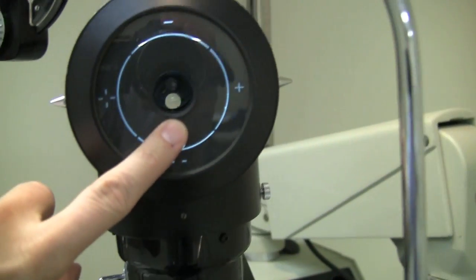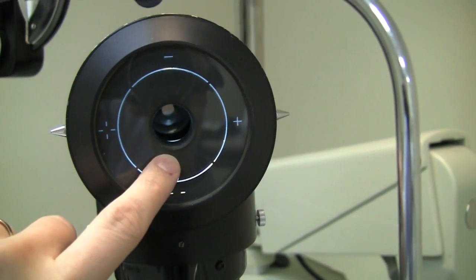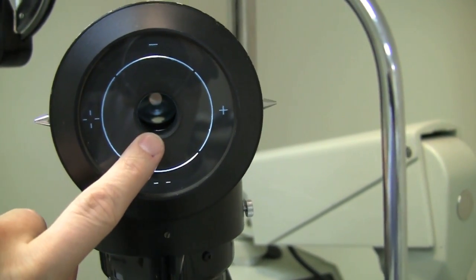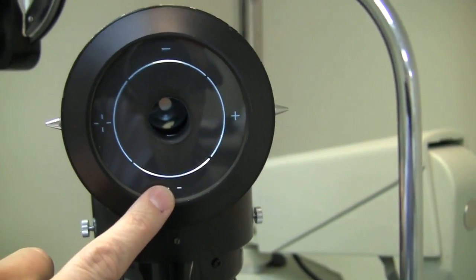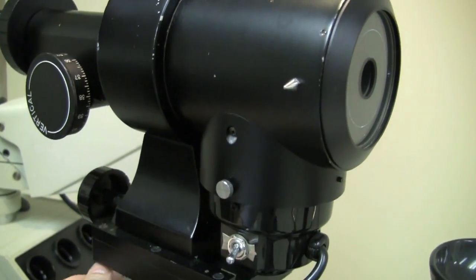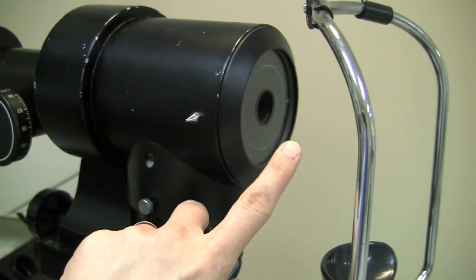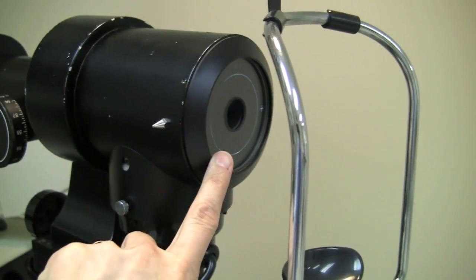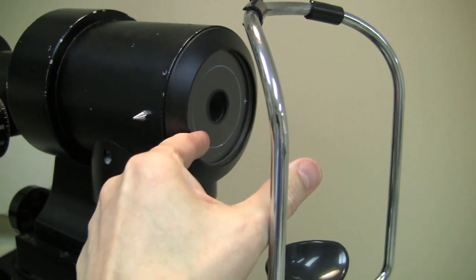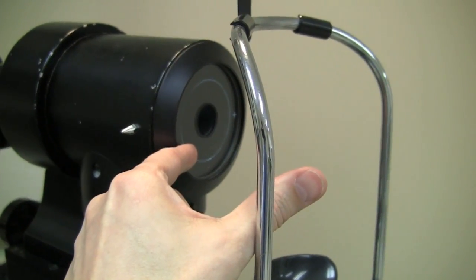So if you look down the tube, you will see some lenses that are in there, and they're all focusing things inside the instrument to get the measurements that you take. So what you're doing when you turn the focusing knob to move the whole thing back and forth is to get the target here, the object for the eye, exactly the right distance away from the eye. And that way, mathematically, everything will work out with the instrument.